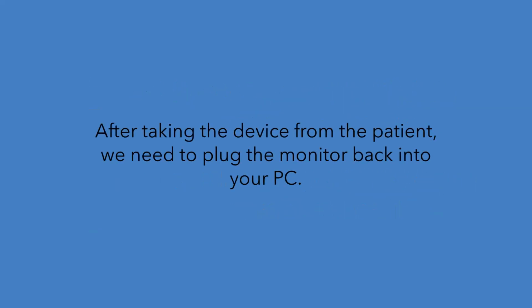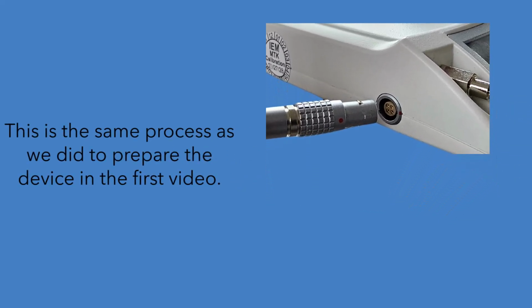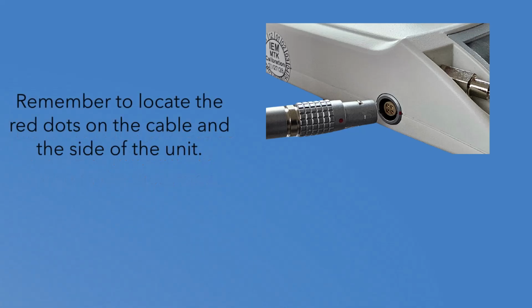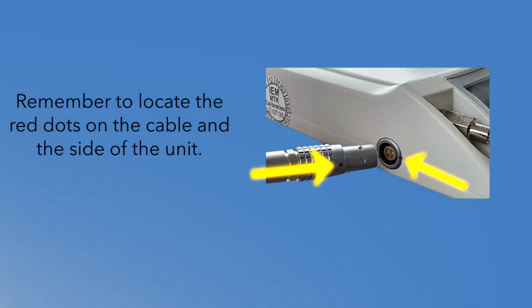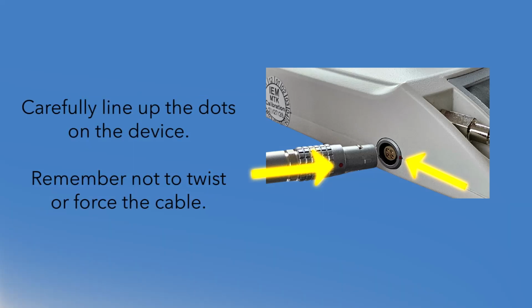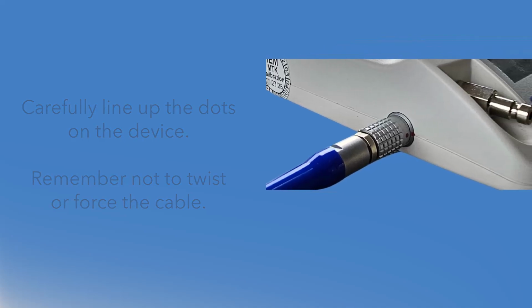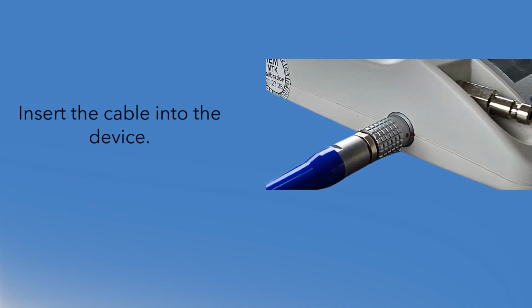After taking the device from the patient, we need to plug the monitor back into your PC. This is the same process as we did to prepare the device in our first video. Remember to locate the red dots on the cable and on the side of the unit. Carefully line up the dots on the device. Remember not to twist or force the cable. Insert the cable into the device.